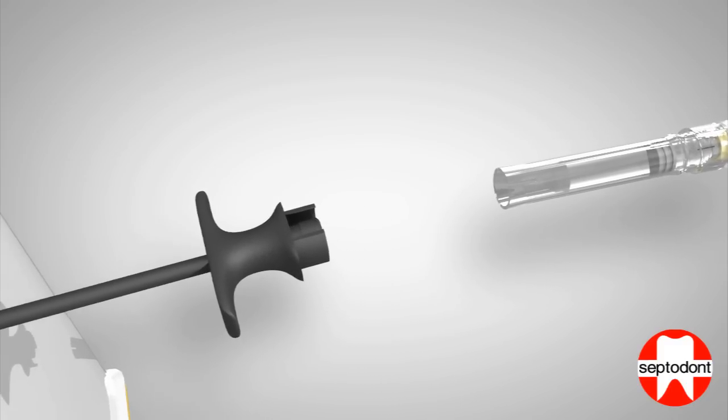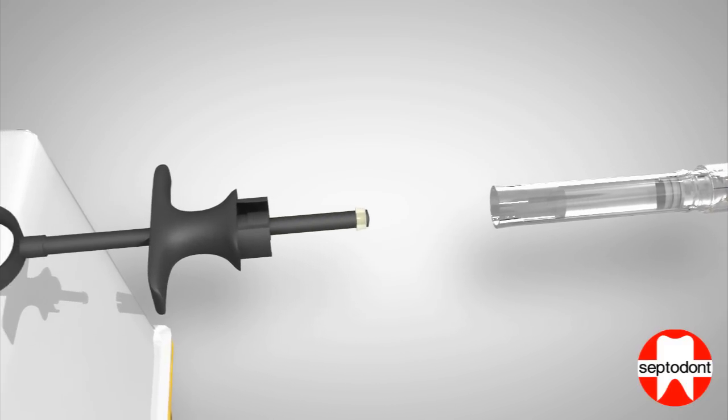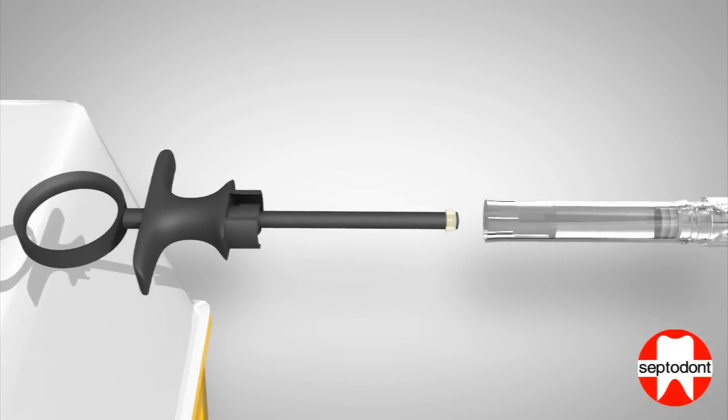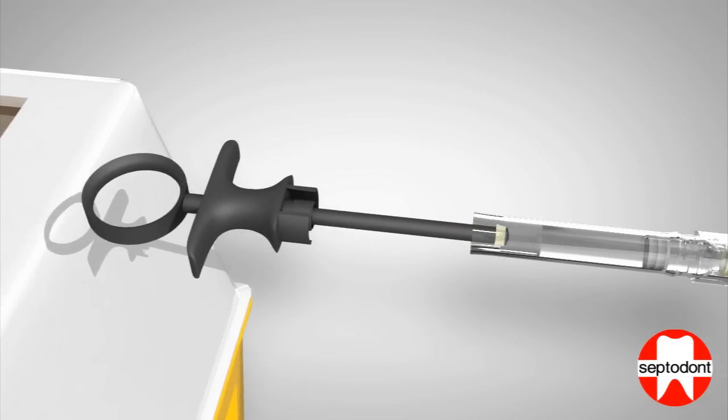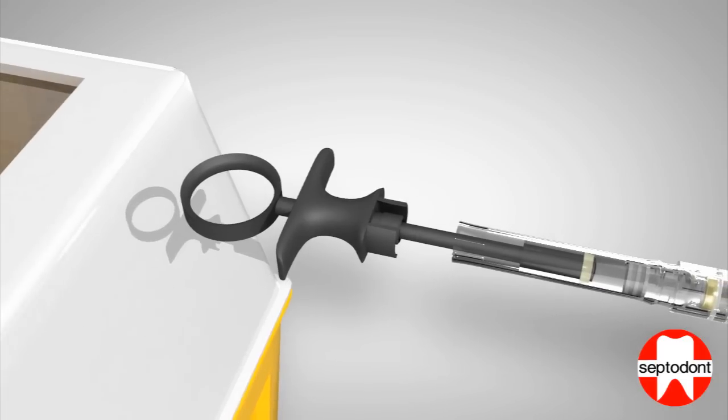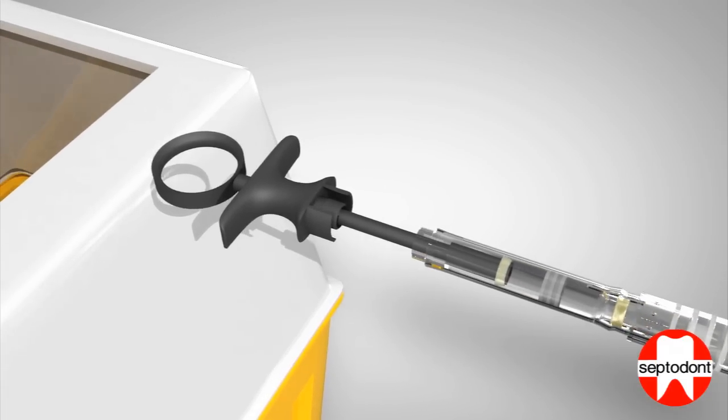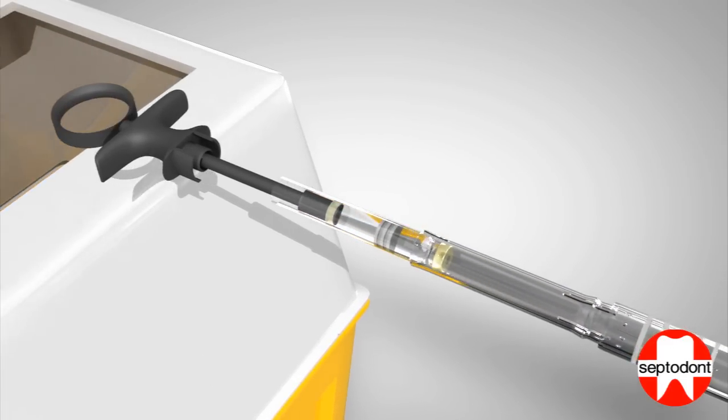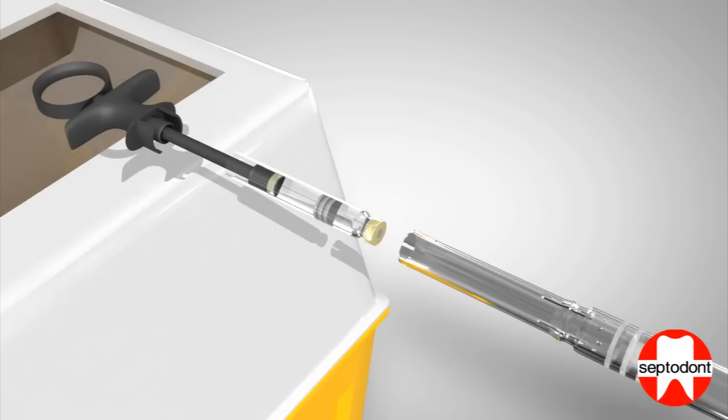At this point, separate the handle from the syringe body and extend the tip of the plunger. Partially insert the tip of the plunger into the open end of the cartridge, then withdraw the plunger with cartridge attached from the device.